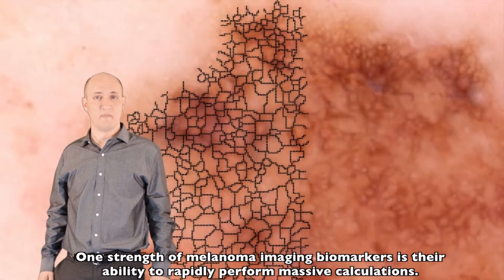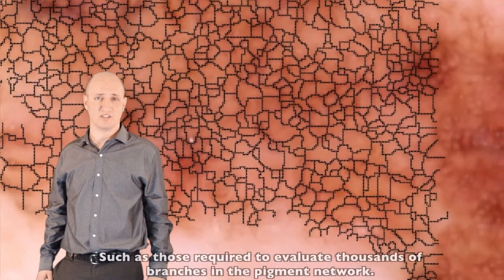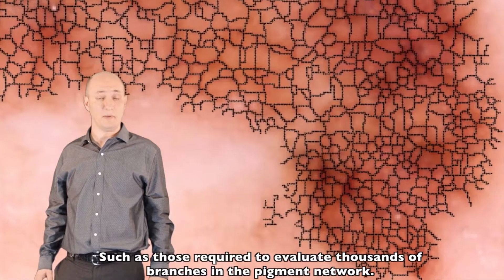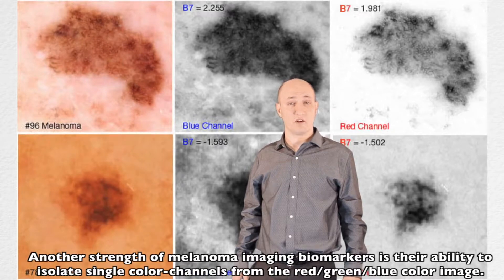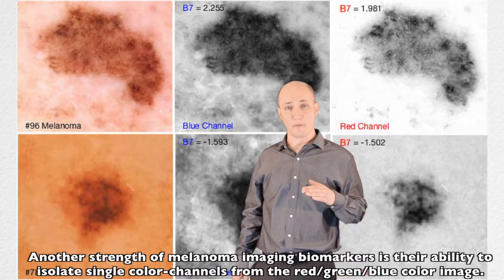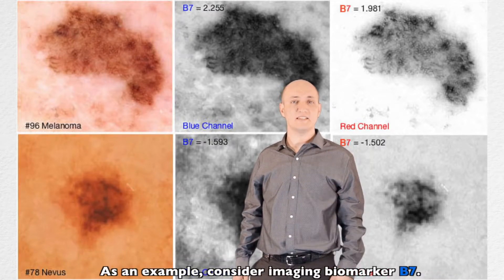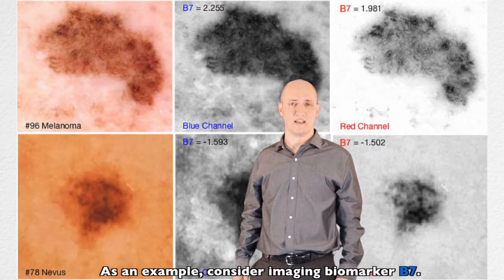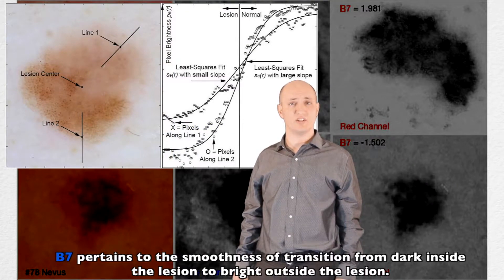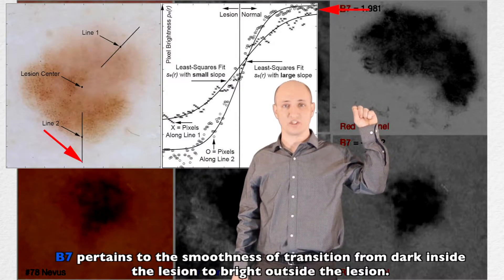One strength of melanoma imaging biomarkers is their ability to rapidly perform massive calculations, such as those required to evaluate thousands of branches in the pigment network. Another strength is their ability to isolate single color channels from the red-green-blue color image. As an example, consider imaging biomarker B7, which pertains to the smoothness of transition from dark inside the lesion to bright outside the lesion.